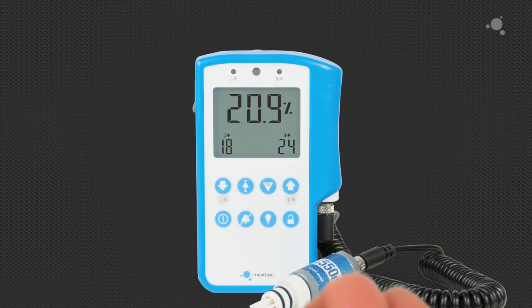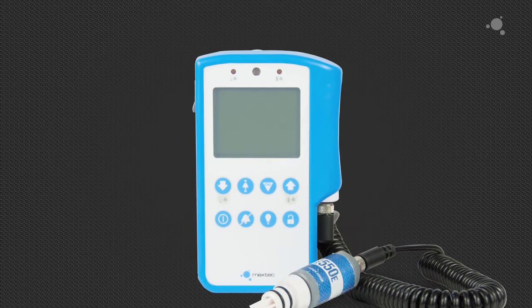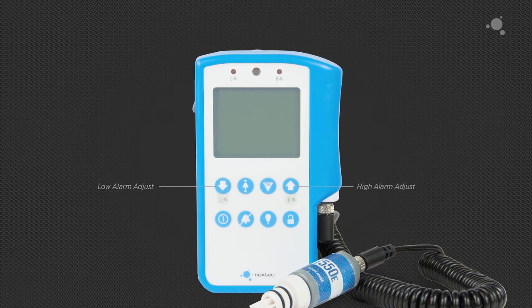Also note that the low and high alarms can still be independently adjusted by pressing the down or up arrows from the menu screen. To set the low alarm less than 18%, press and hold the down arrow key for 3 seconds.